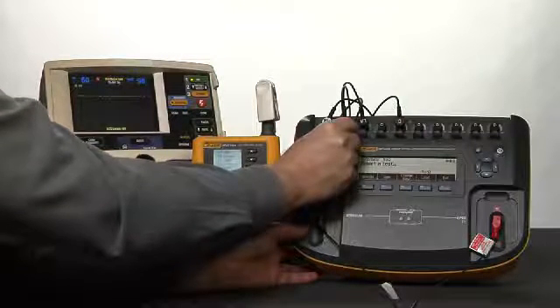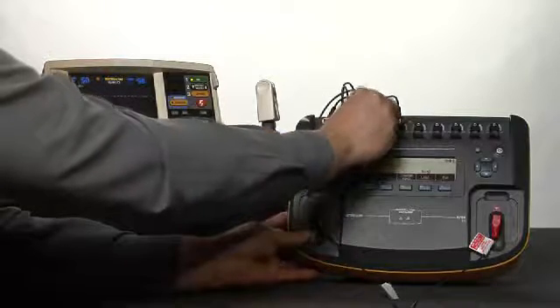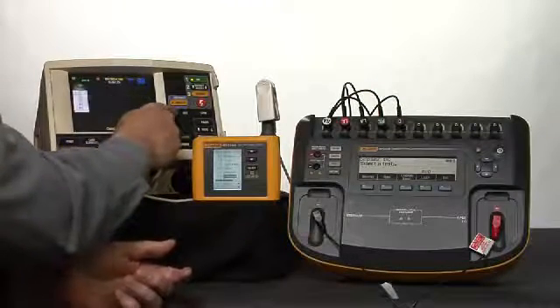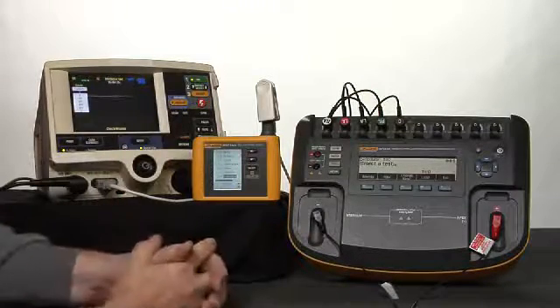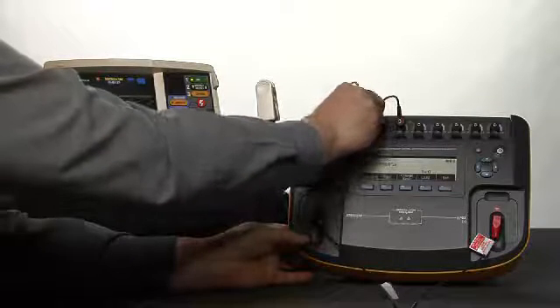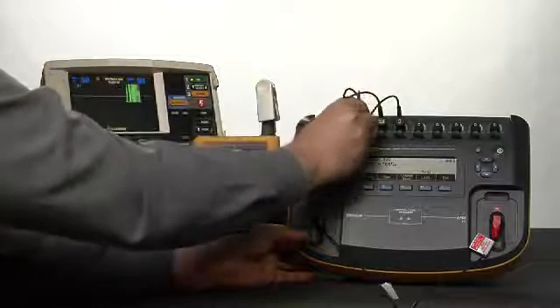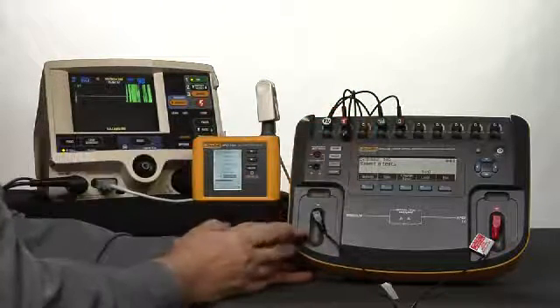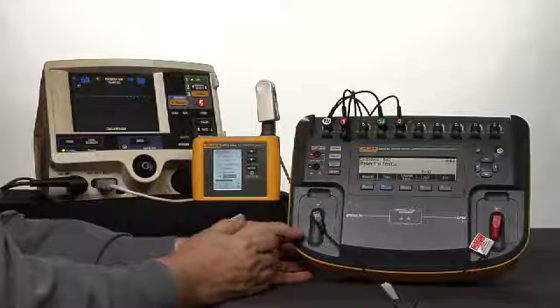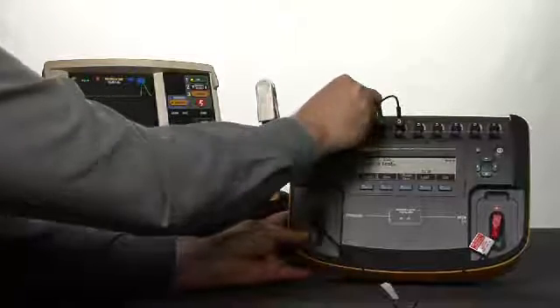The ECG leads off screen message is displayed. Now set your device under test lead selection to lead 1. Lead 1 selected. Remove the left arm lead from the patient simulator and verify that the device under test displays a left arm leads off screen message. Left arm removed and the left arm leads off screen message is displayed. Now reconnect the left arm lead. Reconnected.